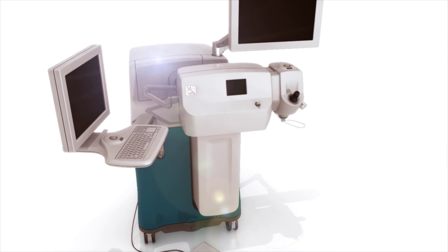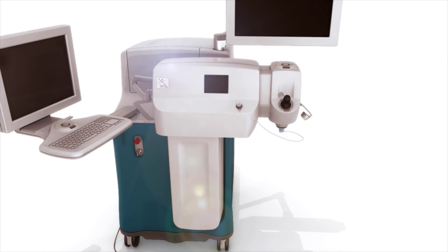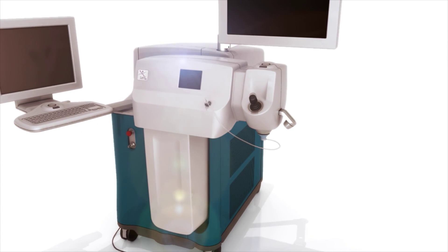The first leap forward in laser refractive cataract surgery, Alcon's LensX laser is putting the future in motion, delivering the accuracy of a femtosecond laser to refractive cataract surgery.